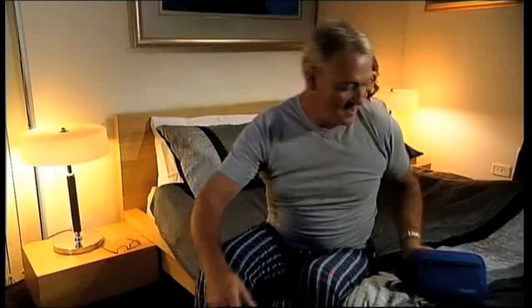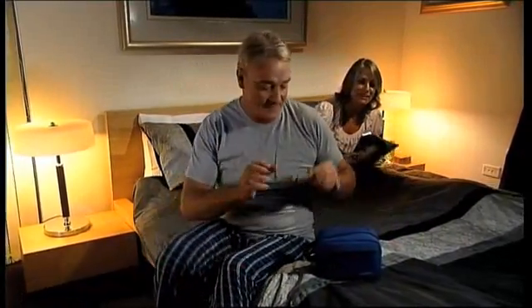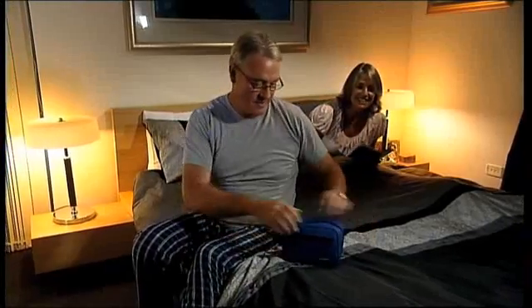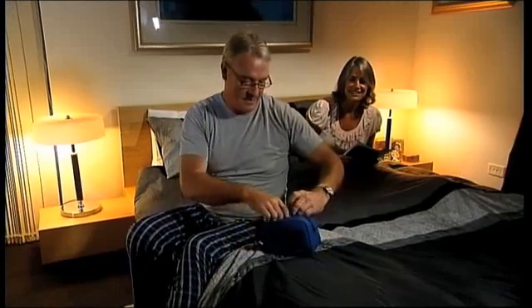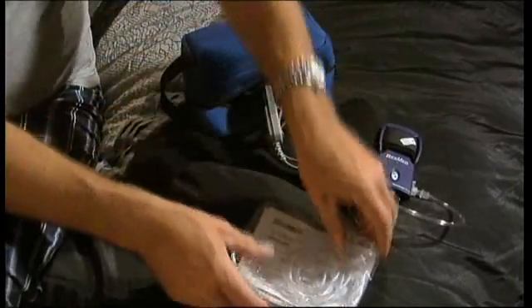These instructions are intended to help you get the most from your use of ResMed's ApneaLink Plus. It will not only familiarize you with the device, it will also help you make sure you use it correctly and efficiently. So let's get started — don't worry, it's simple and doesn't hurt at all.